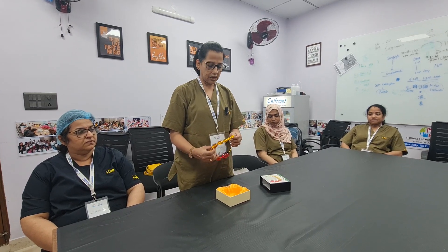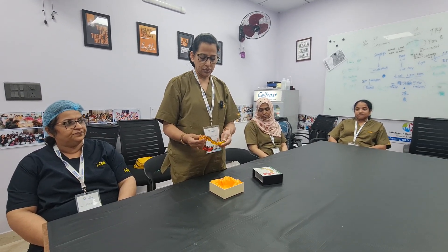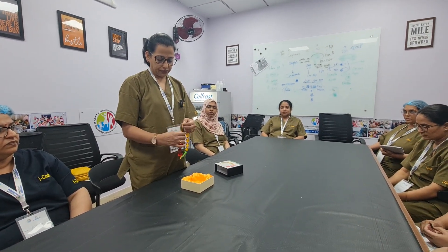The pubertal beads are 3 ml onwards and go up to 12 ml. The adult beads are 15 ml, 20 ml and 25 ml.